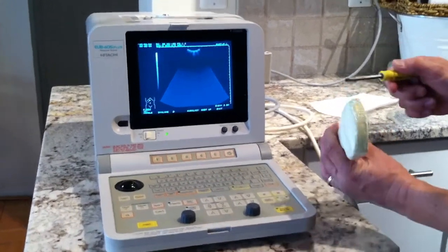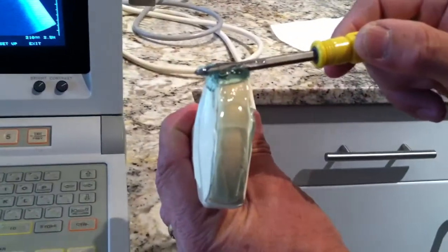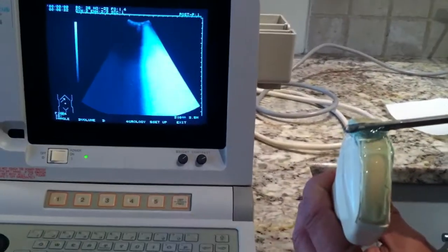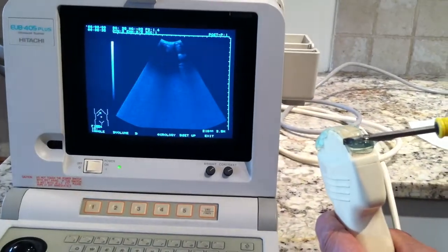Assistant, get close up with the gel — show the gel. So now we go back. You see? Even the edges have good elements; you can see the white light. So this is a perfectly good working transducer.